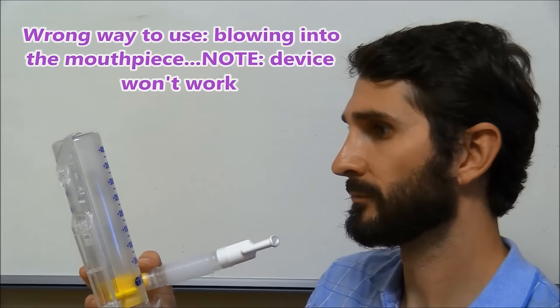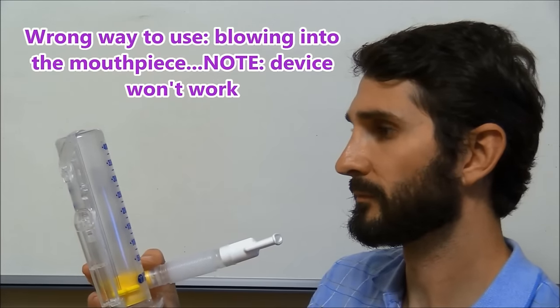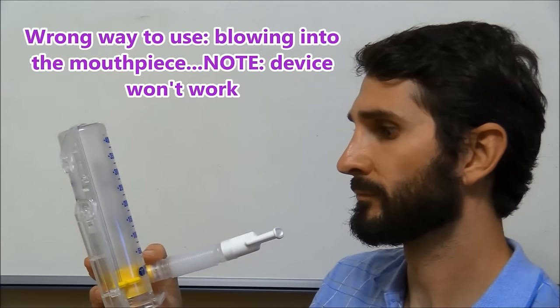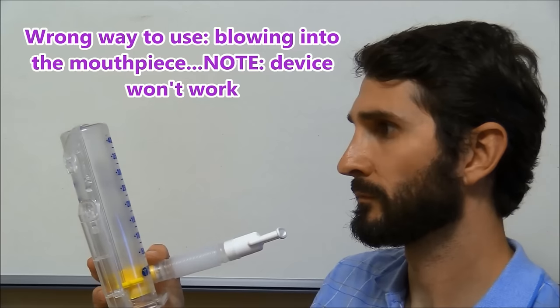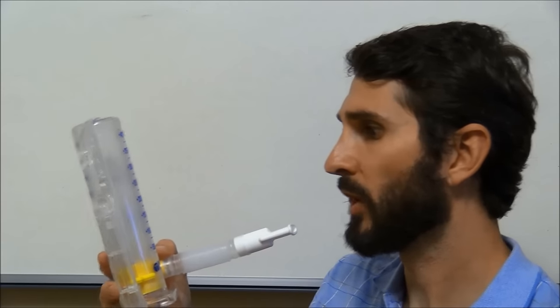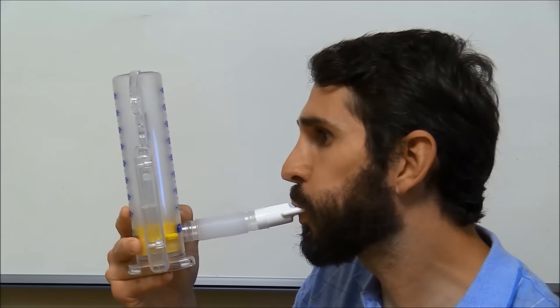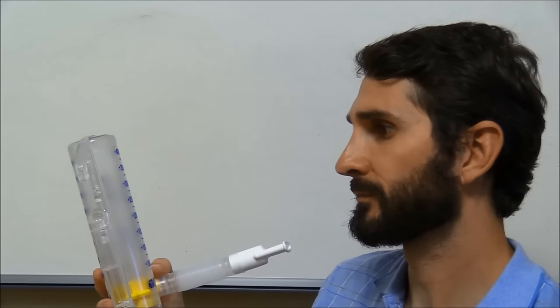Okay, first let's go over some wrong ways to use an incentive spirometer. A lot of times, if patients haven't been educated properly, they will do what they think you're supposed to do naturally with it by blowing into the device, rather than actually inhaling from the device.